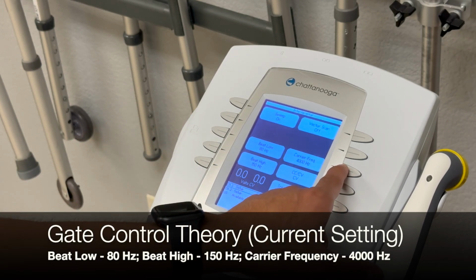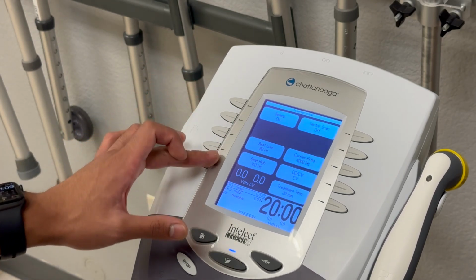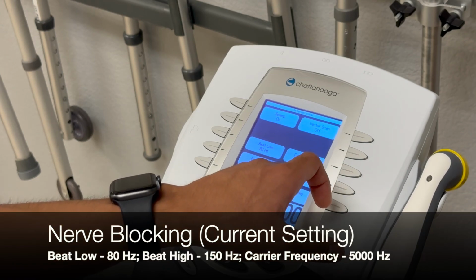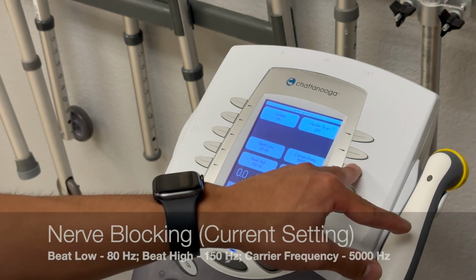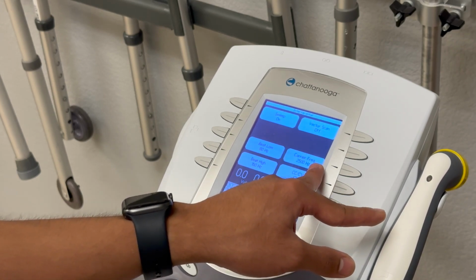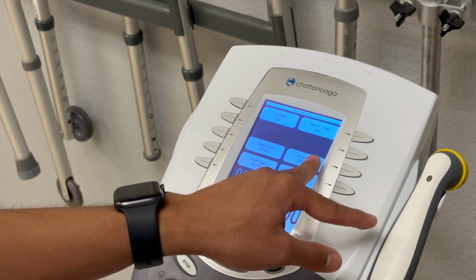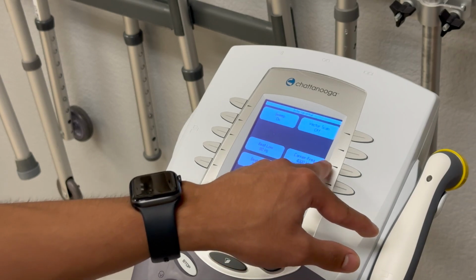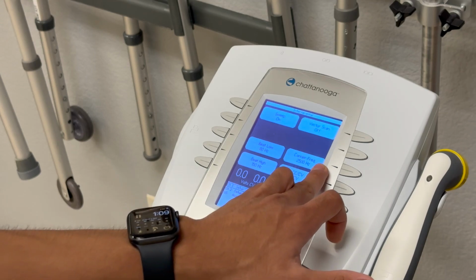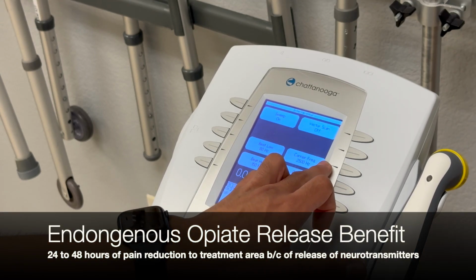This will go ahead and address gate control theory, which is pretty much sending stronger signals to block pain receptors. We change that to 5000 hertz. This goes into nerve blocking for physiological response. And now we're at 2500 hertz for carrier frequency, where carrier frequency will address opiate release. Endogenous opiate release is more of a long-term effect, whereas these two, the 4000 and the 5000, are during treatment. So we'll go with the 2500 hertz for opiate release, which will address it for a bit more of a long term, up to 24 to 48 hours.